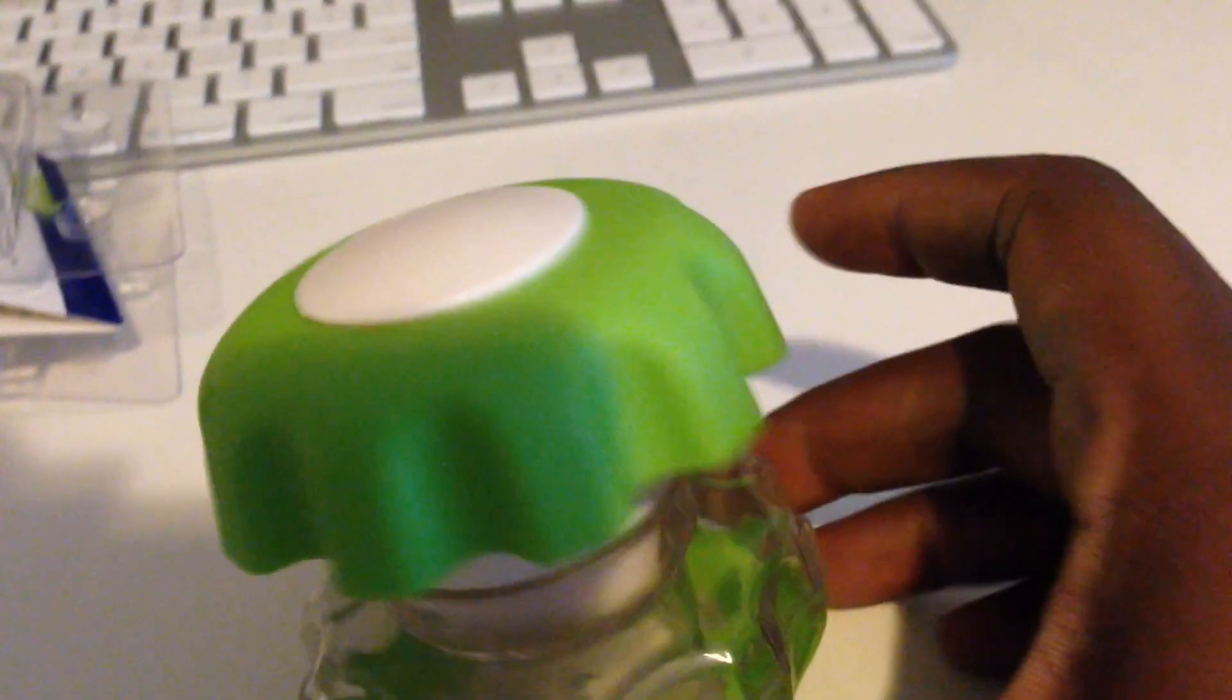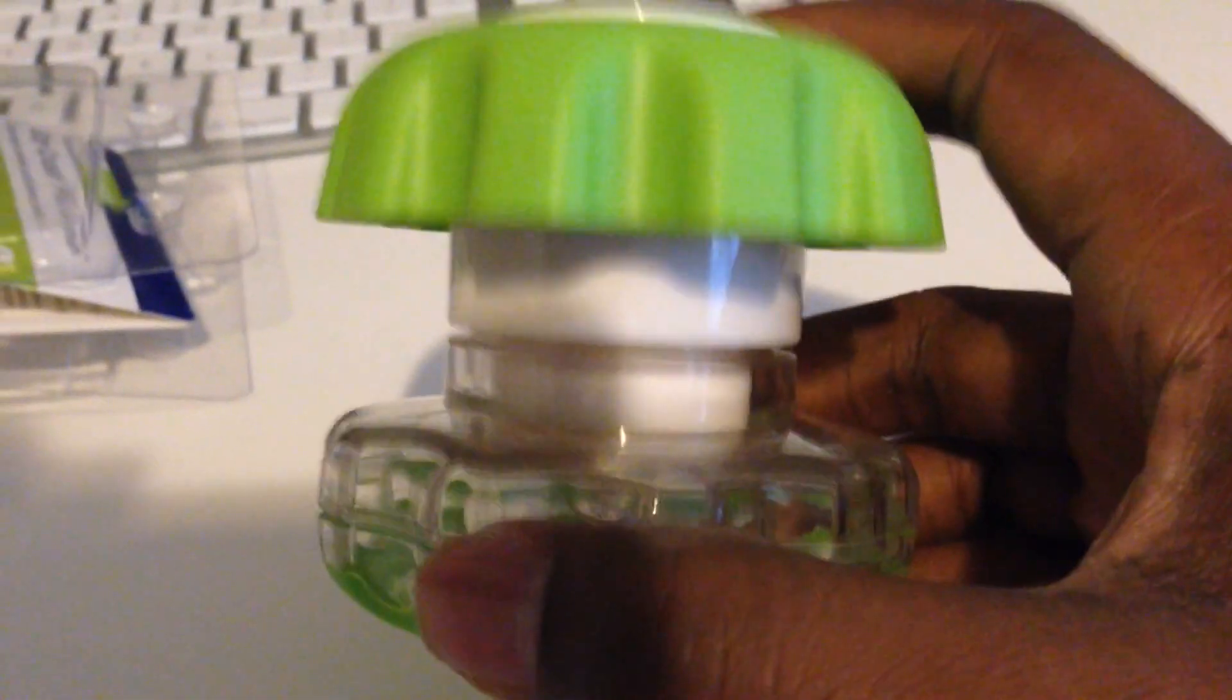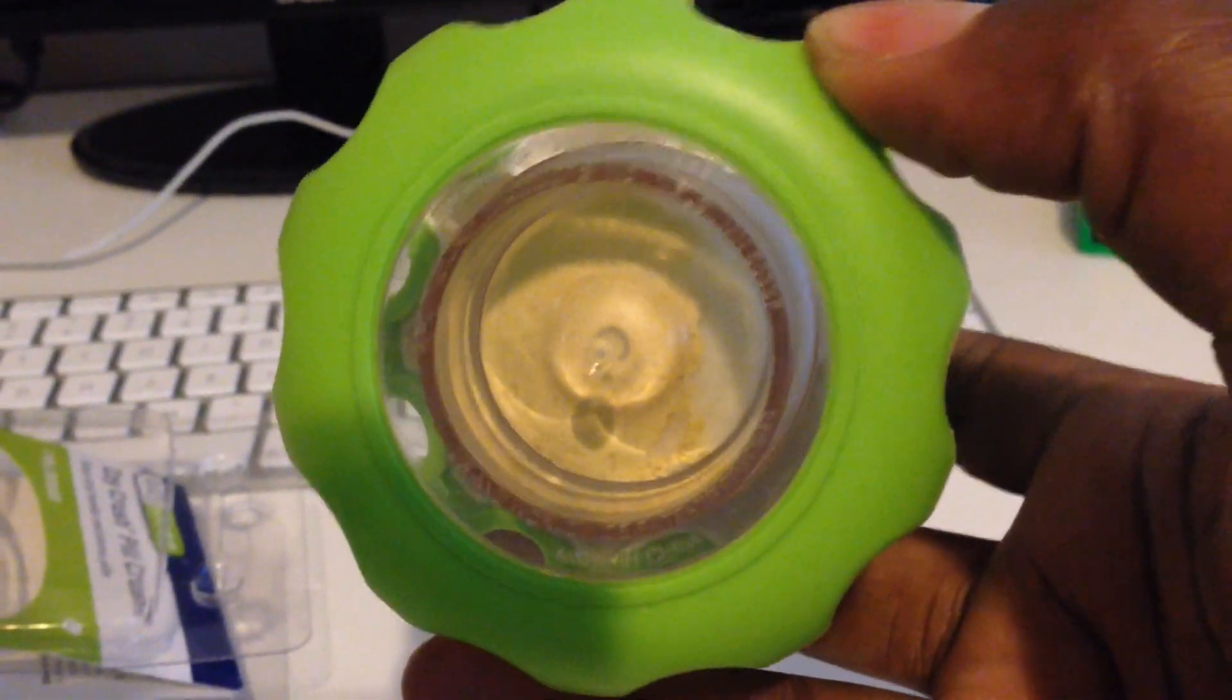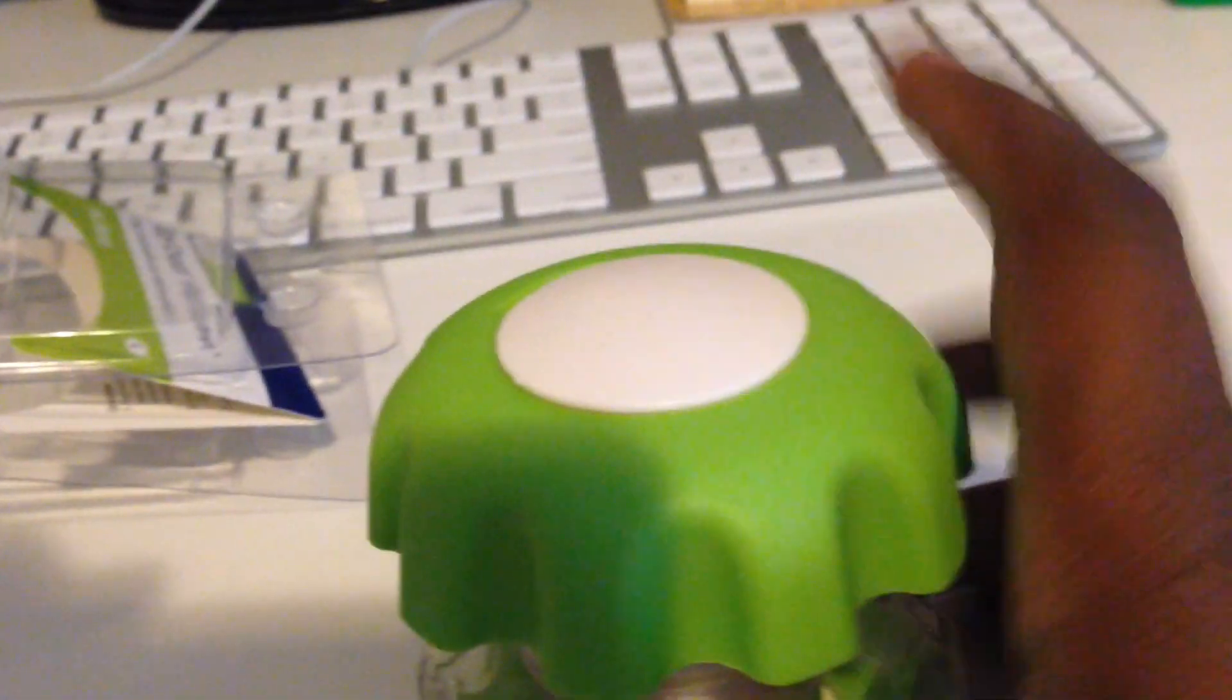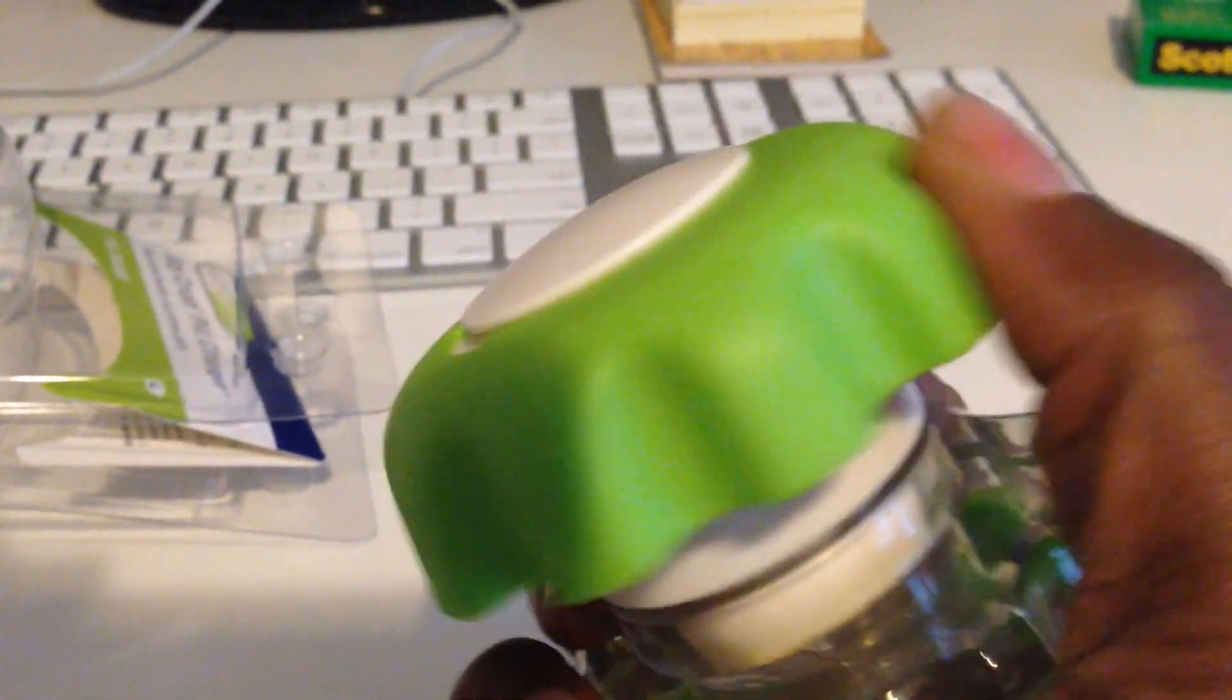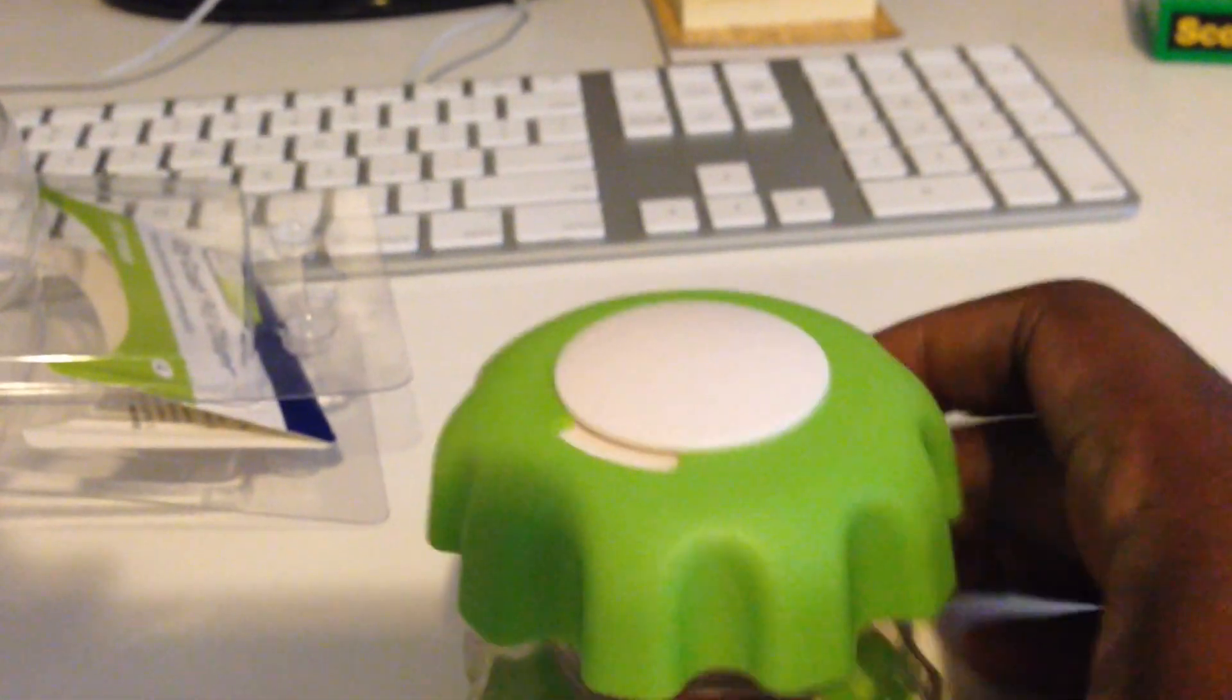Alright, so I got it all the way down and it crushed. It had no problem crushing it too. You can see the powder at the bottom. It crushed it with ease, there was no struggle or nothing. Let me unscrew it.